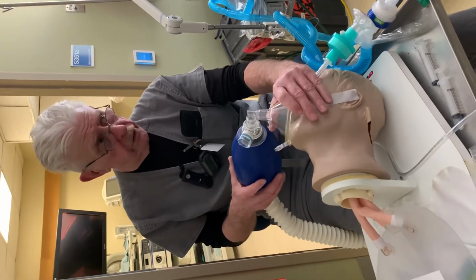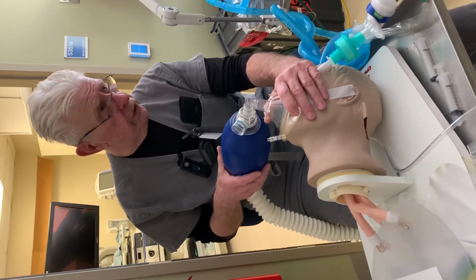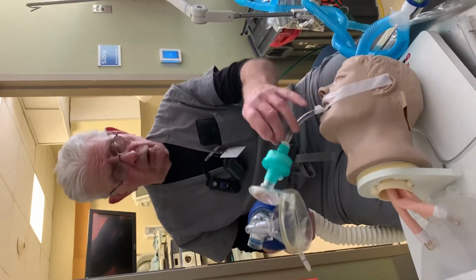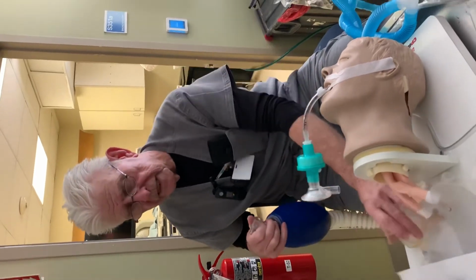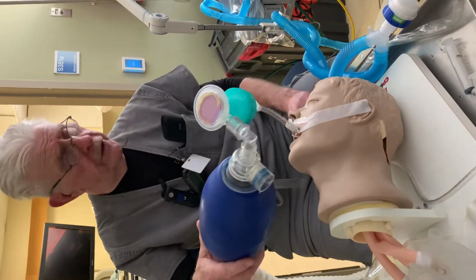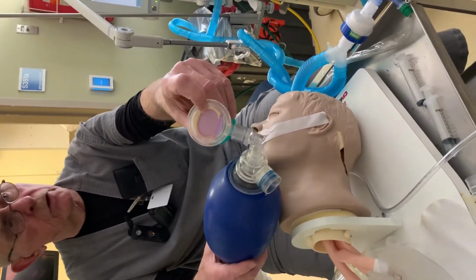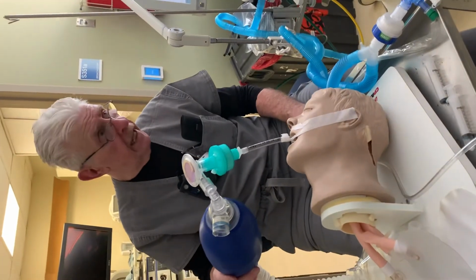Usually requires a tonsil suction in the room as well for any oral secretions that appear there. And again, that would be your respiratory therapist or anesthesia being paged to replace this endotracheal tube. So that's how you would use that. This is how you would use the end-tidal CO2 to verify whether or not this tube is actually in the patient's lungs. It would only be beige or yellow if the patient's tube is in the trachea.